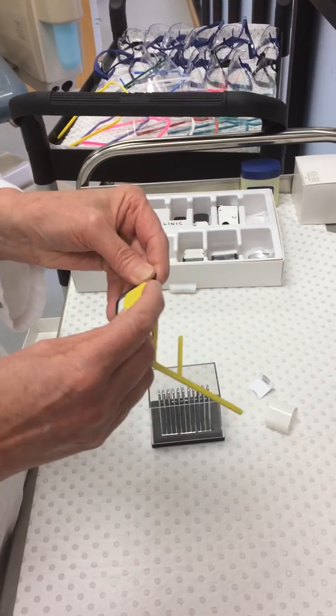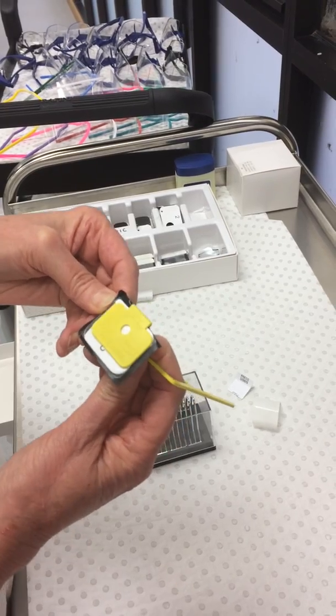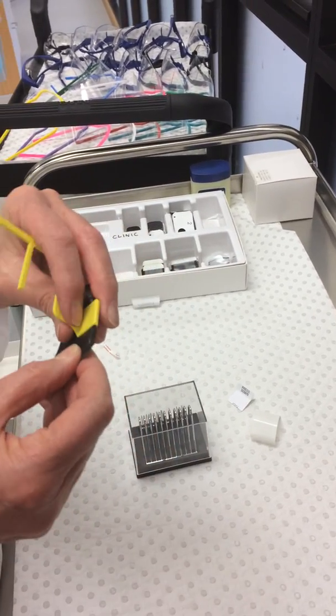Then you turn it around. Make sure you place it evenly on the phosphor plate. So check the back and check the front.